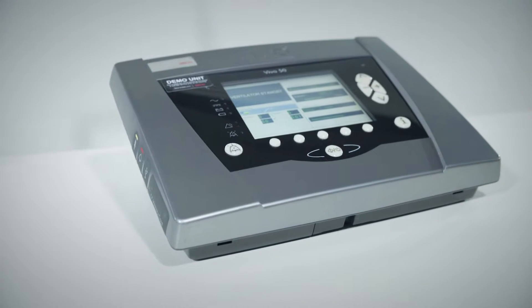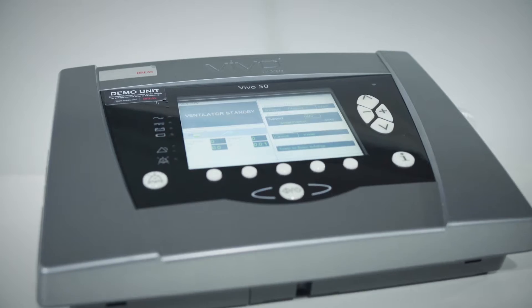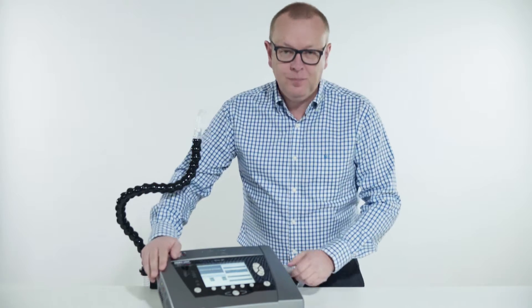Hello and welcome to the Brea's tutorial series. In this video I will show you how easy it is to do the setup of the Vivo 50 and 60 so that it can be used to supply volume controlled mouthpiece ventilation.